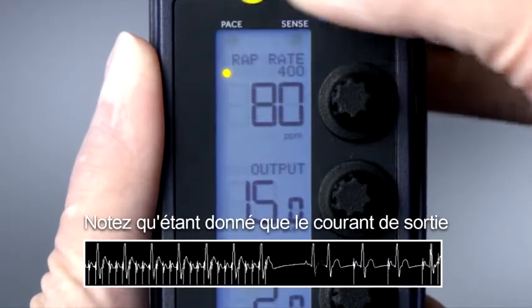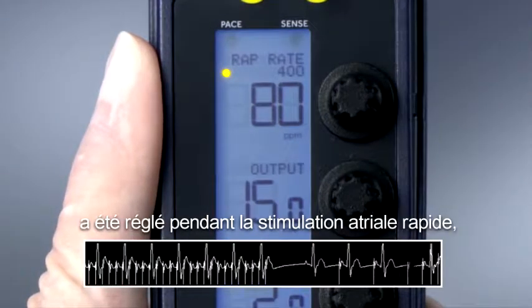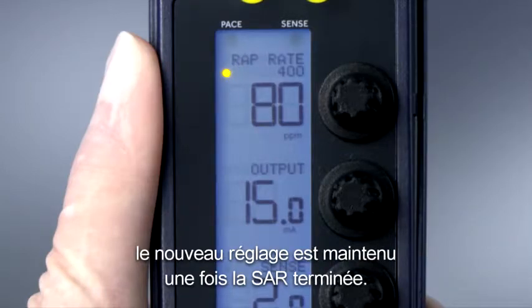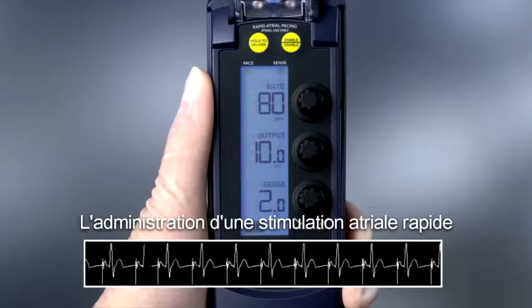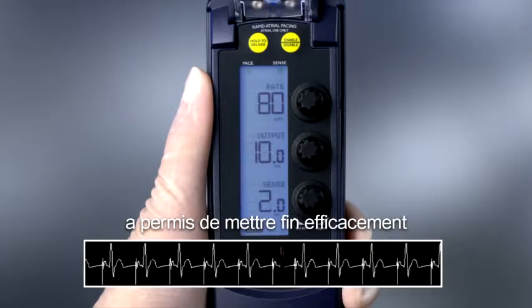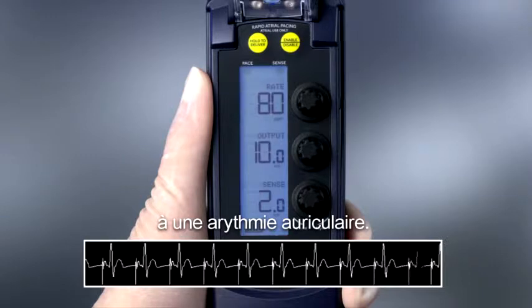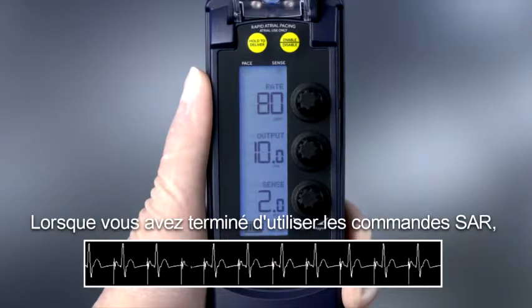Notice that since the output was adjusted during rapid atrial pacing, the new setting is retained when RAP is terminated. This delivery of rapid atrial pacing was successful, resulting in the termination of an atrial arrhythmia.